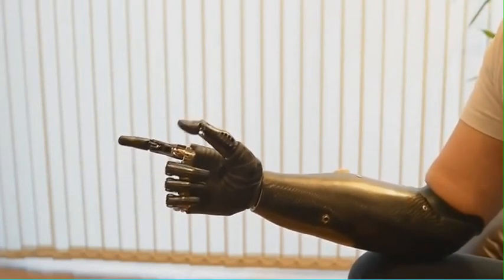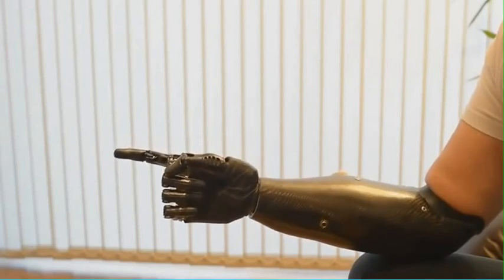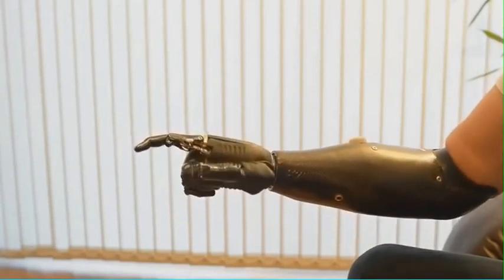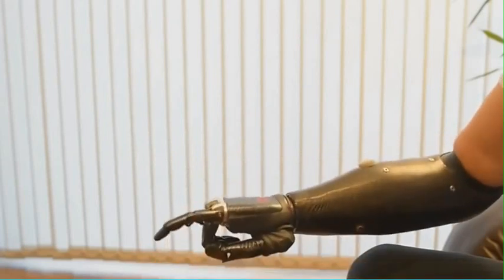Now move to a point. Pretty self-explanatory. This one will allow me to type on the keyboard.